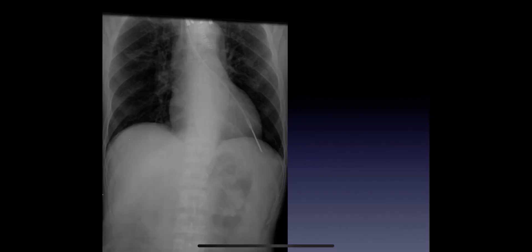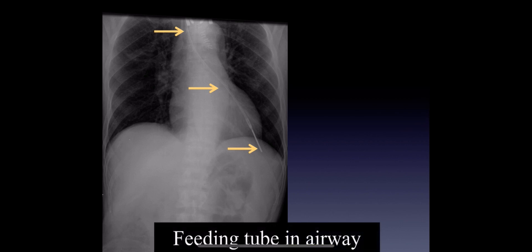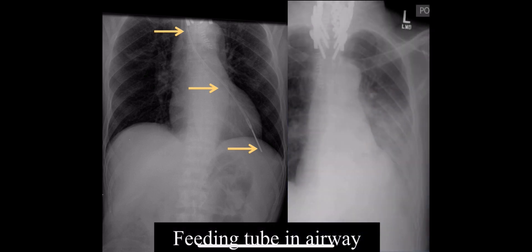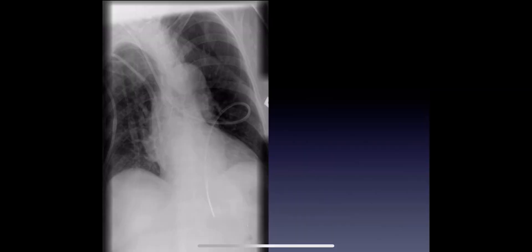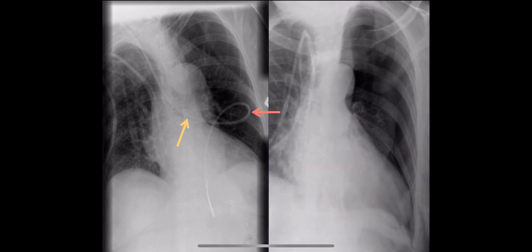This is obviously not good. This is a nice example of a feeding tube whose tip is in the lung in the left lower lobe, following the typical course of the airway. This case was done overnight, was not detected, feedings were started, and the patient had a pneumonitis from being fed into the lung. Even more concerning is when the tube does this — it's in the airway extending into the left main stem bronchus and then makes a very sharp curve. When you see that sharp curve, generally what that means is that it has perforated out into the pleural space. It's important to tell your clinicians to get a chest tube kit ready to go in case the patient decompensates acutely, because a large bronchopleural fistula and sizable pneumothorax can develop very quickly.